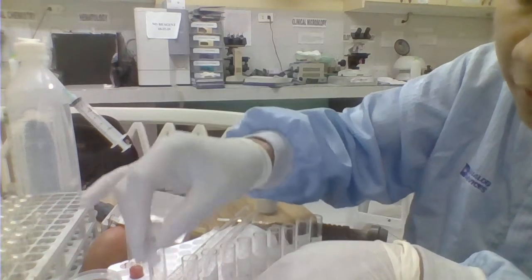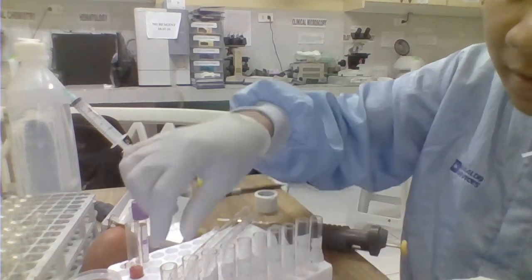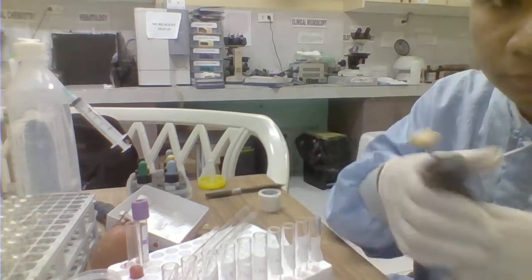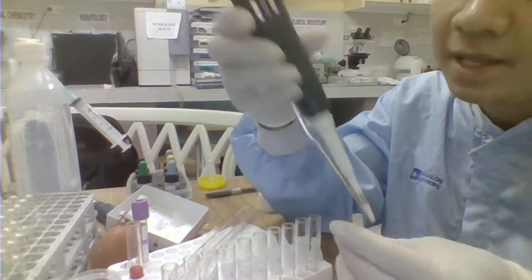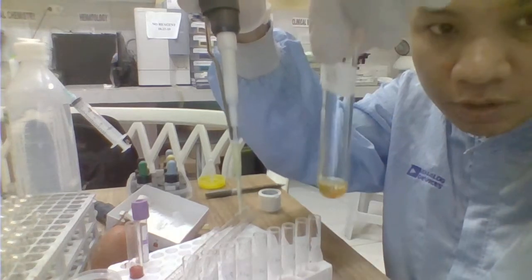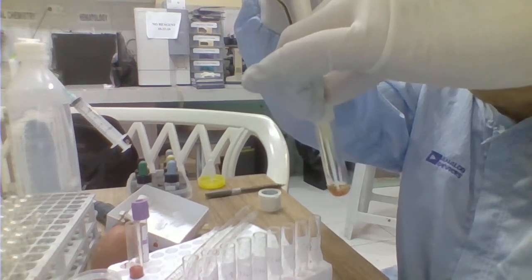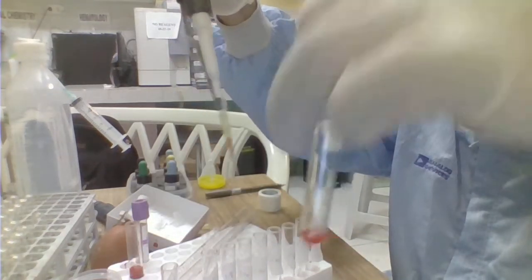So, magdi-dilute na tayo. For this one, kailangan natin ng panibagong yellow tips. Okay, so after natin ma-mix itong tube number 1, what we're going to do here is kukuha tayo ng 100 UL, or that's 0.1 ml. This is tube number 1, 1:1 na dilution. Kukuha tayo ng 100 UL. Na-transfer natin dito sa tube number 2.